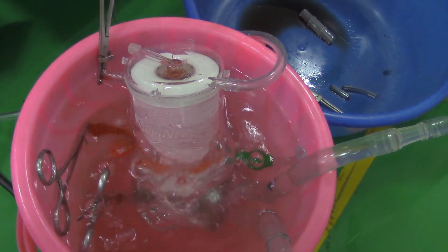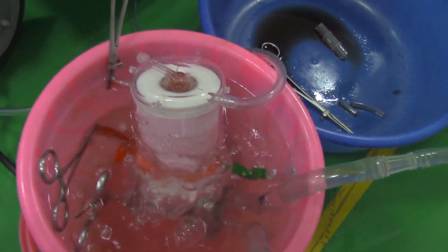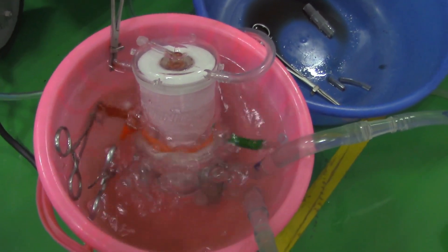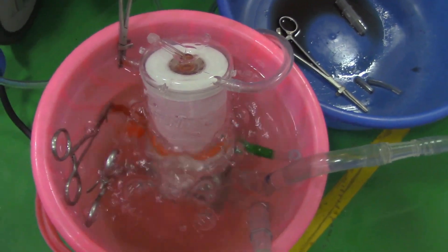Recently I posted a video of an oxygenator that was showing a massive air leak when submerged underwater, which led to massive air embolism.